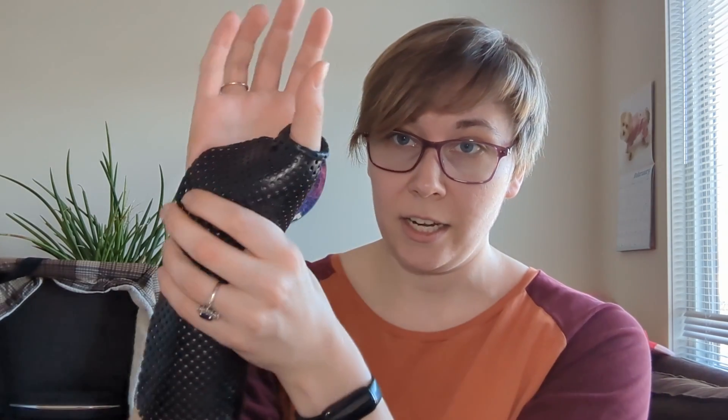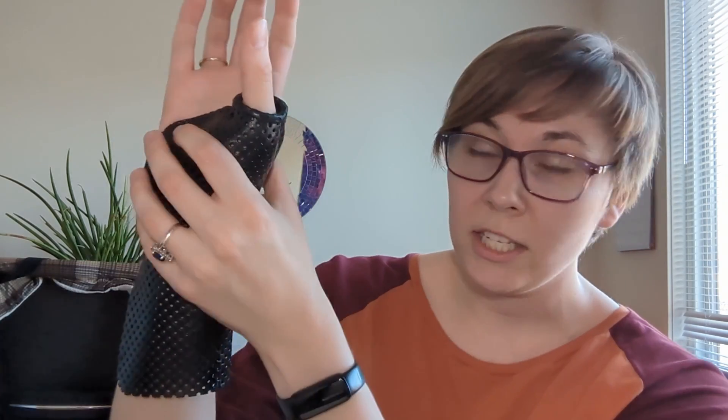The most important thing is that it crosses the wrist but also supports the thumb. It is not good enough to just have a brace that covers the wrist. Sometimes because the pain is here, patients will come in and just get a wrist brace without the thumb included. But that doesn't do them any good because that thumb is still moving and those tendons are still rubbing. So it must include the base of the thumb. You can leave the tip joint of the thumb free because the extensor pollicis longus, which extends the tip of the thumb, is a different tendon running in a different sheath. So the tip is free, but the base — the extensor pollicis brevis and abductor pollicis longus — can rest.